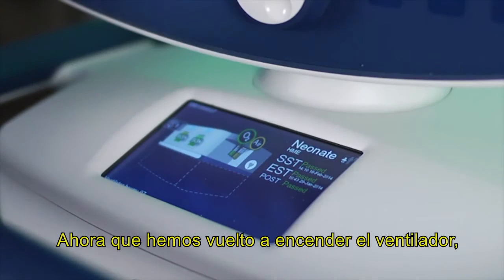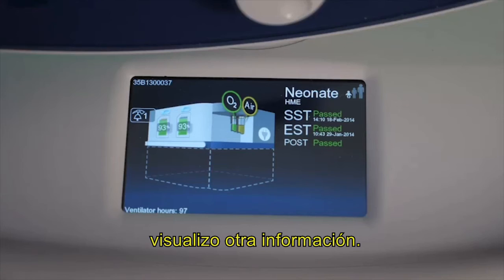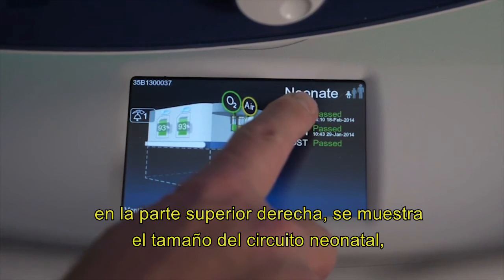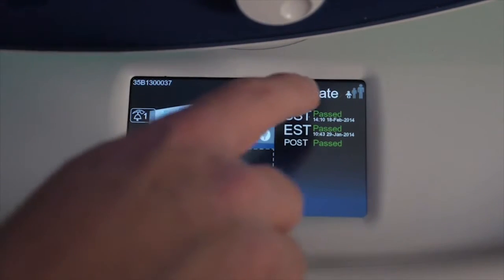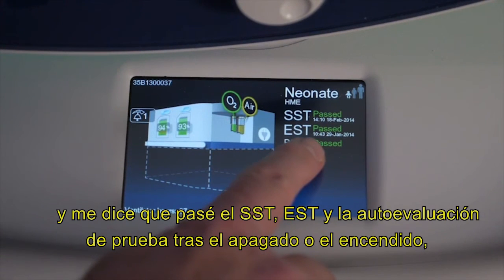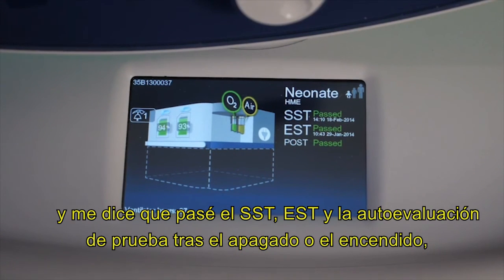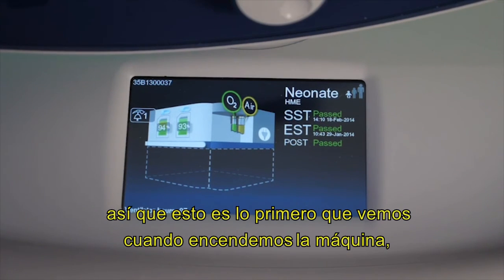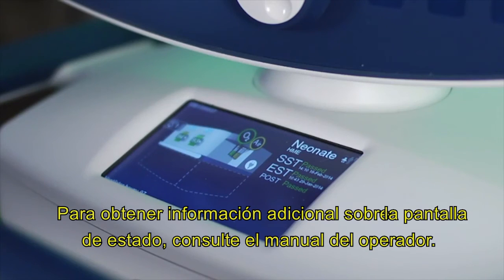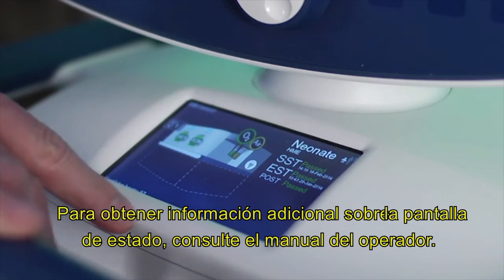So now that we have powered the ventilator back up, I have some other pieces of information. Basically on the top right-hand side, you'll see that it says neonatal, circuit size. It's an HME approach. And then it tells me that I've passed the SST, the EST, and the POST, or power on self-tests. So you see that when you first turn the machine on as compared to when it's in normal operation. For additional information on the status display, please refer to the operator's manual.